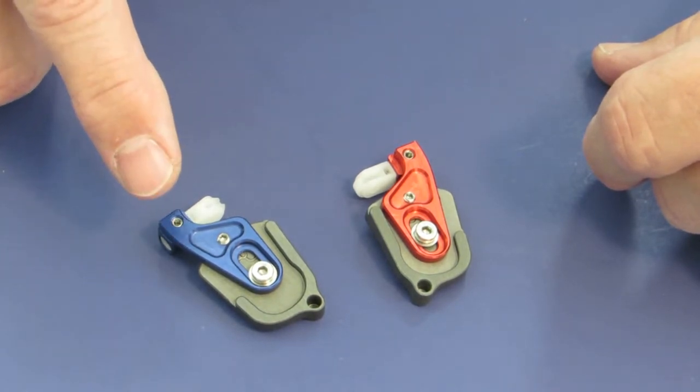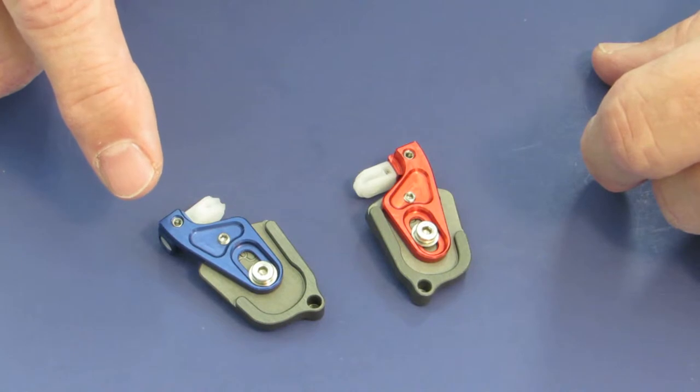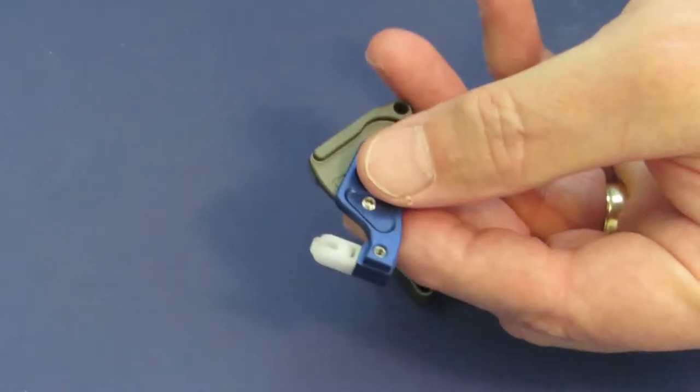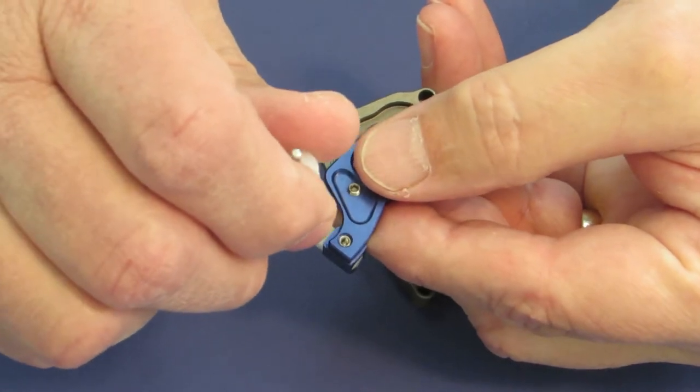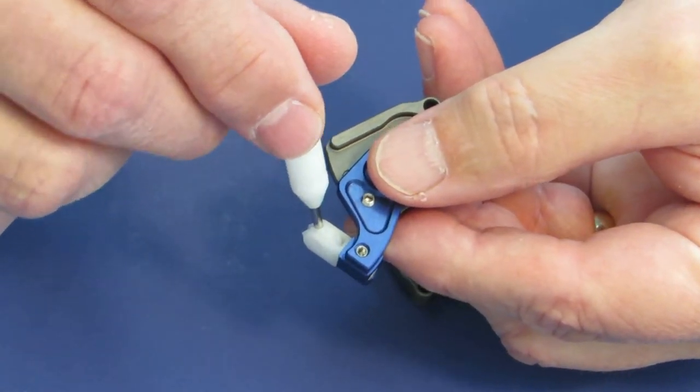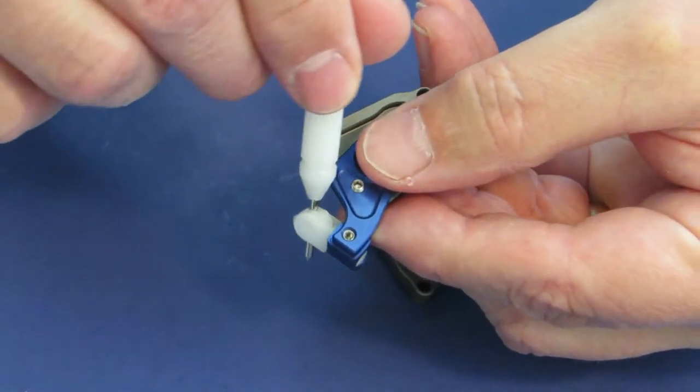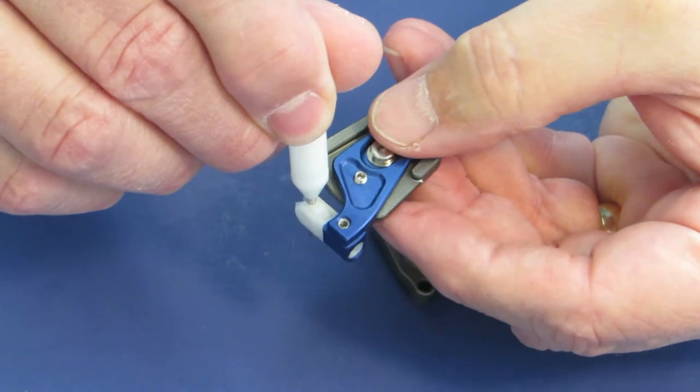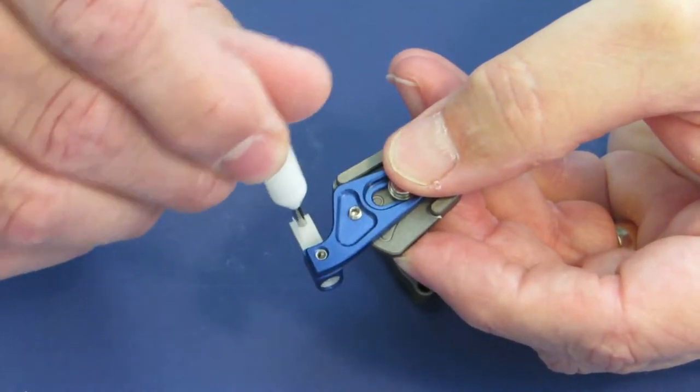They are fully mechanical with a series of just four screws. They are movable in all planes of space. So this is where we would be putting our drill, and as you can see it is fully movable anywhere that we need to adjust this to place an implant.